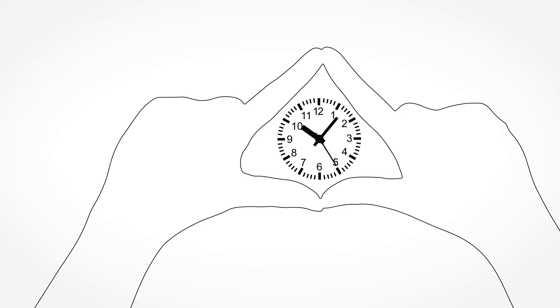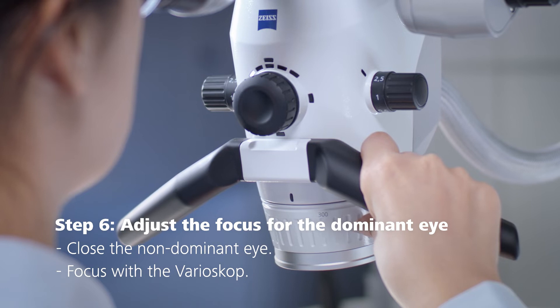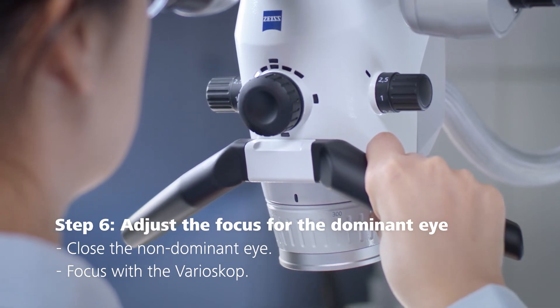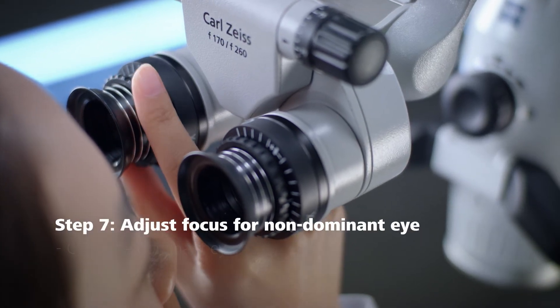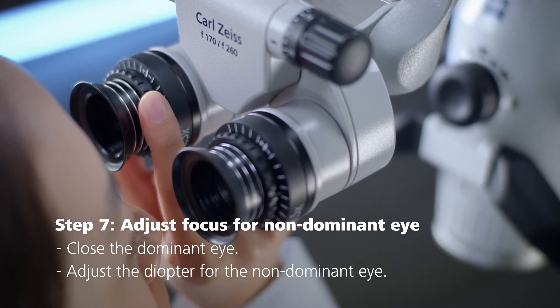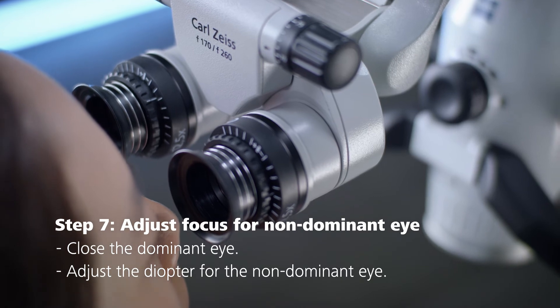Step 4: if the object stays centered, your right eye is your dominant eye. If the object is no longer framed by your hands, your left eye is your dominant eye. Focus on the object with your dominant eye using the varioscope, keeping your non-dominant eye closed. After setting your dominant eye, rotate the diopter ring of the non-dominant eyepiece clockwise from plus 5 until the object is in focus.